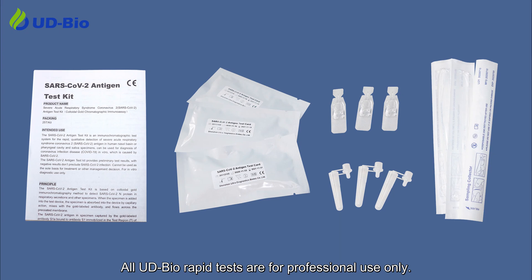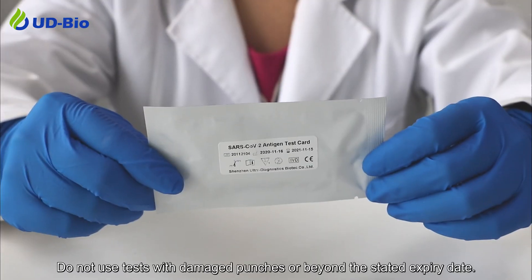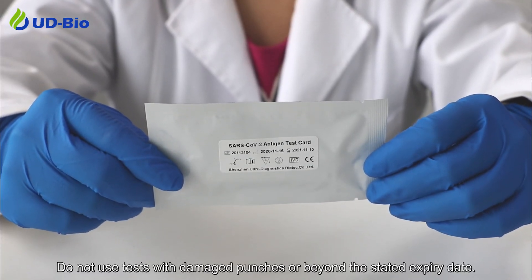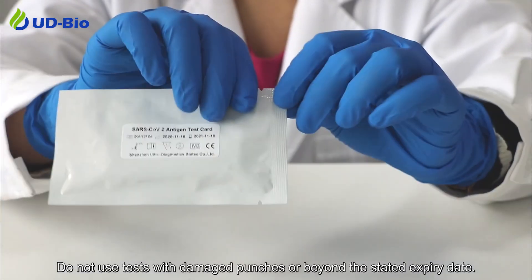All UD BioRapid tests are for professional use only. Do not use tests with damaged pouches or beyond the stated expiry date.